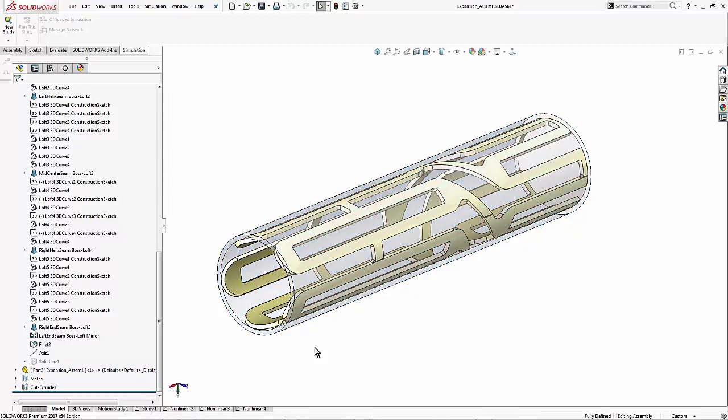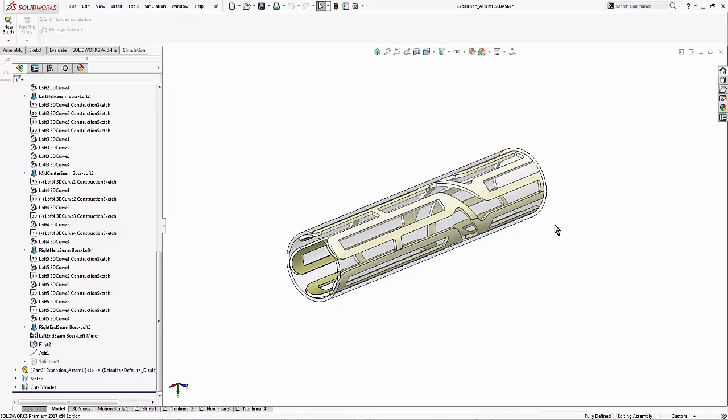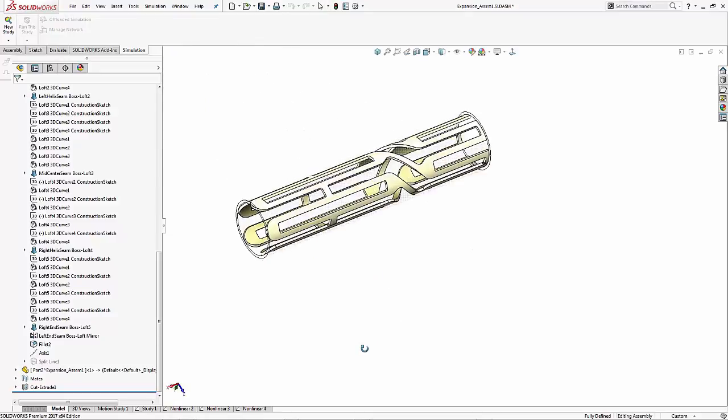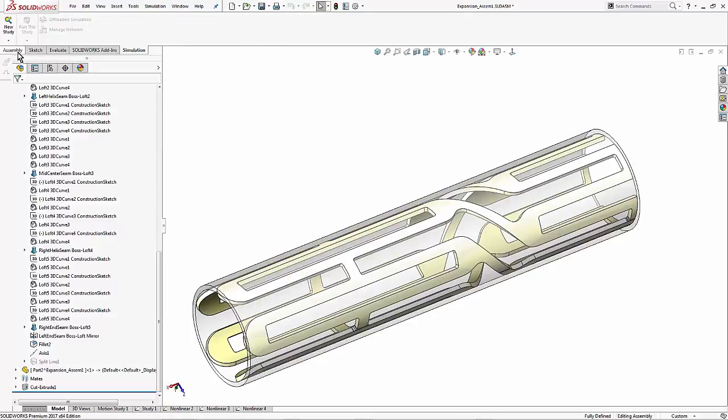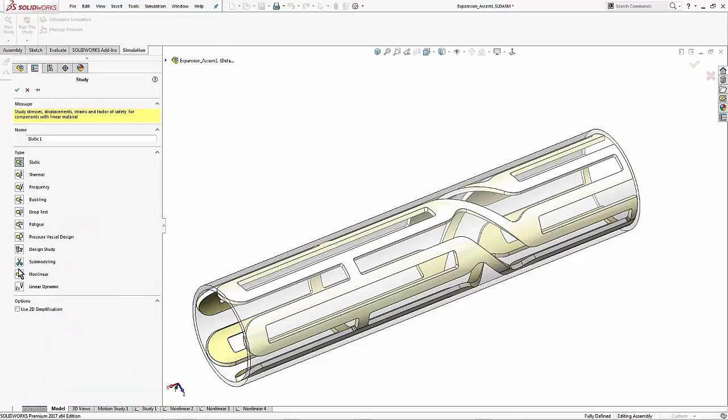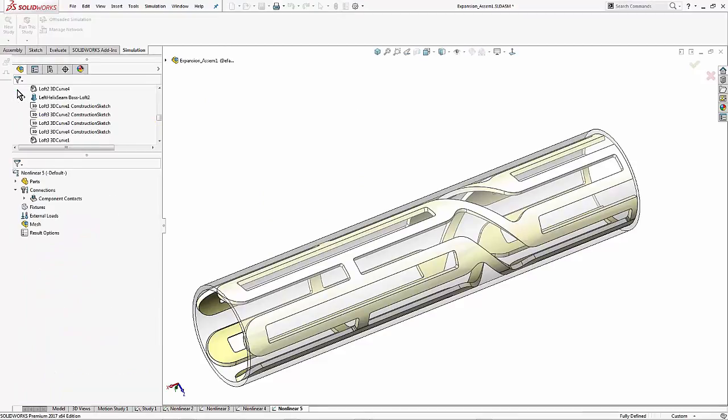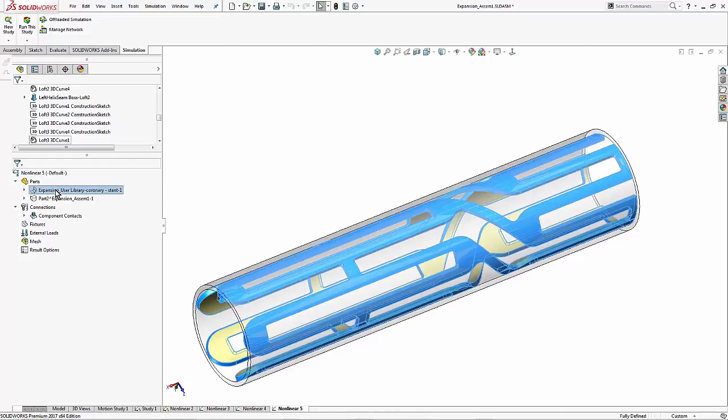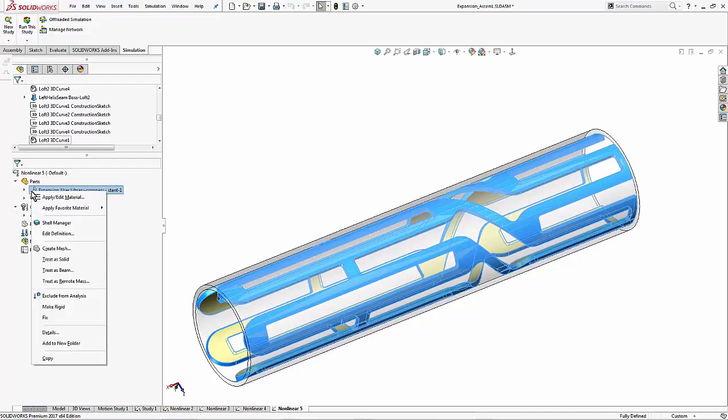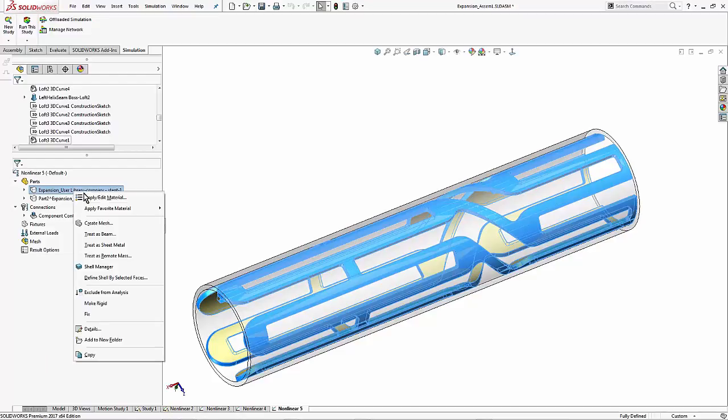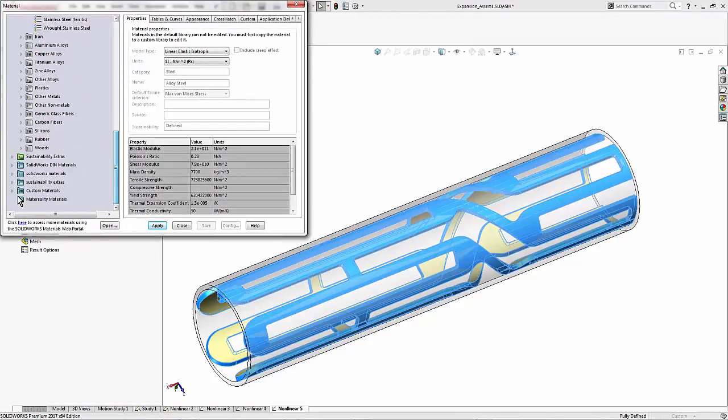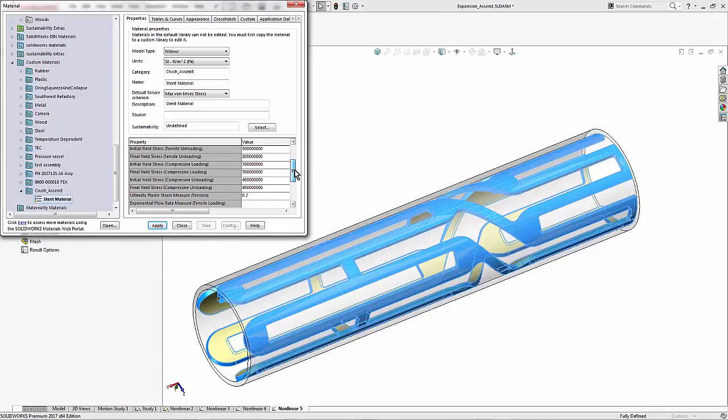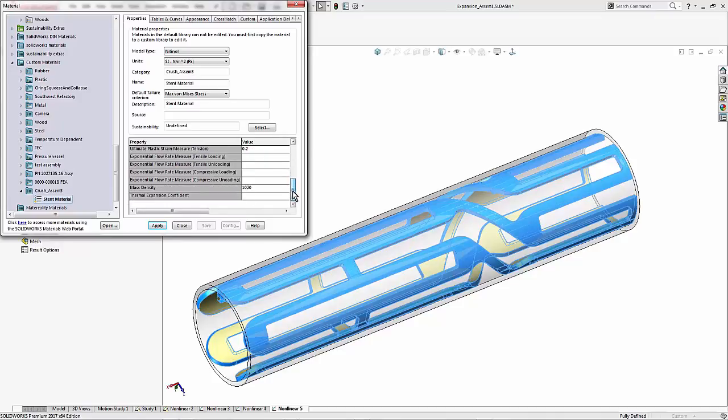This outer cylinder could represent the plaque or the blood vessel wall. I would just need to have two of them if I was going to use both. I have cut this in half. Symmetry restraints are always useful. And then getting into setting up the analysis here. New study, non-linear. Hit okay. Start from the top of the tree. The stent was made using SOLIDWORKS sheet metal features which imports this component as a sheet metal thin shell element type of model. This is good for a speedy calculation but not good for accuracy. So I'm going to treat this as a solid with a right click. Then we apply our custom material that we made before and I tested on my axial rod. Just to look at the data real quick I've got elastic modulus, Poisson's ratio, eight different data points for yield, and the ultimate plastic strain. The rest is blank. So I'll apply that. Hit okay.